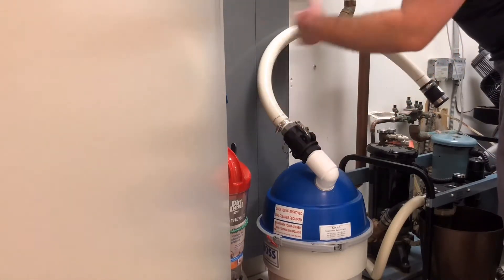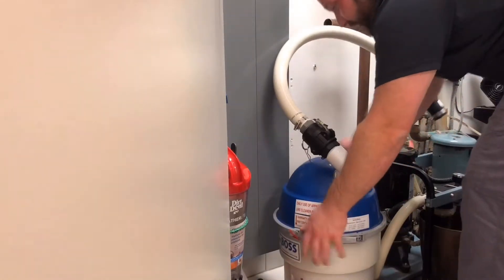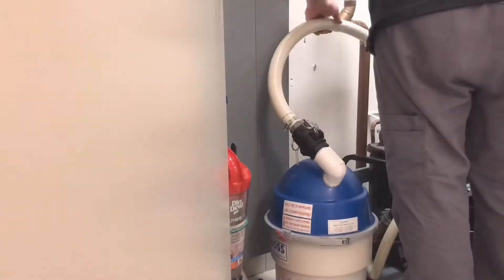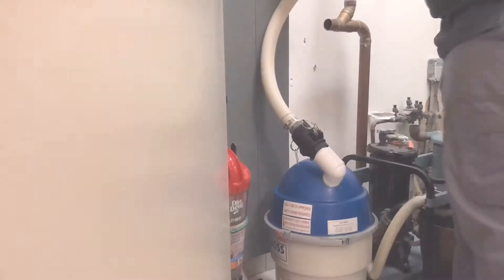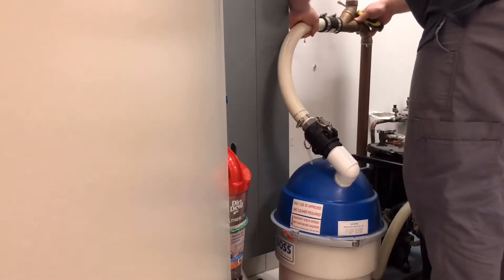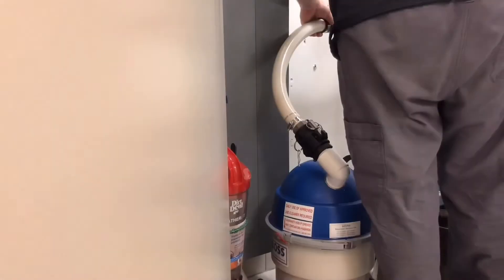If your Liberty Boss is blocking anything in the mechanical room, do not worry — the use of flex hose and Quick Connects makes the system easy to move. You can use your hacksaw to cut the excess hose off the inlet. Slide the rubber coupler over the inlet pipe and flexible hose, using your 5/16ths nut driver to tighten the hose clamps on the rubber coupler.